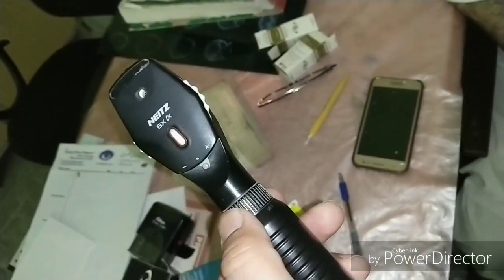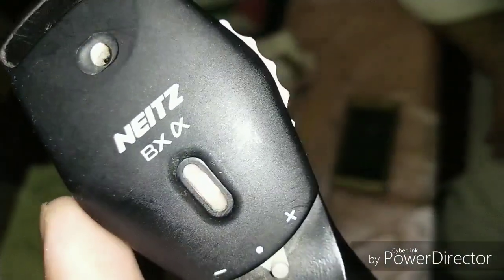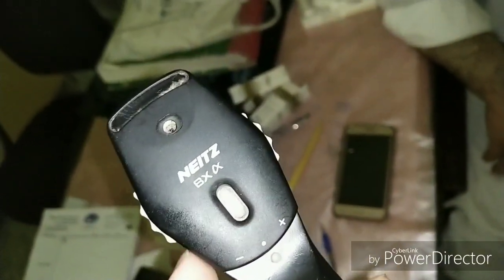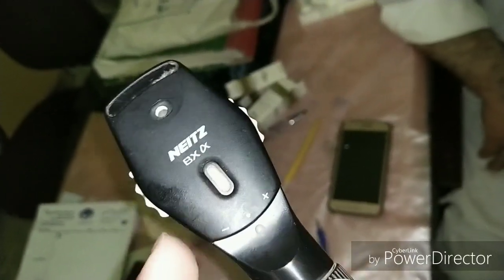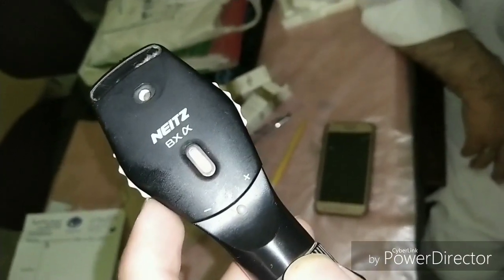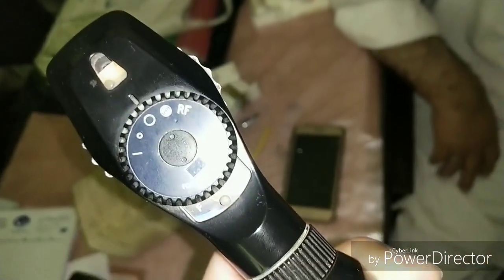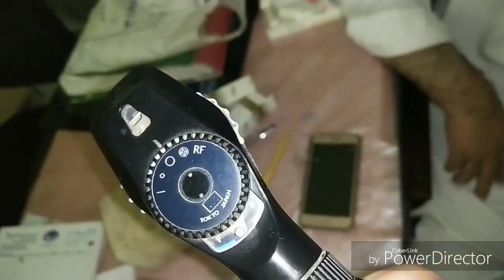The head consists of the light source, the bulb, the viewing window through which we see the image, and the lens dialer. The lens dialer consists of spherical plus and minus lenses — minus lenses are usually with red numbers and plus lenses are usually with black numbers. So if you have a refractive error, suppose minus one diopter sphere, you can put the minus one red color lens in place and examine the patient's fundus clearly without wearing glasses. You can also roughly measure the refractive error of the patient — for example, if the patient is minus 10 diopter myope, you will see the fundus clearly when you dial minus 10 diopter sphere on the lens dialer.